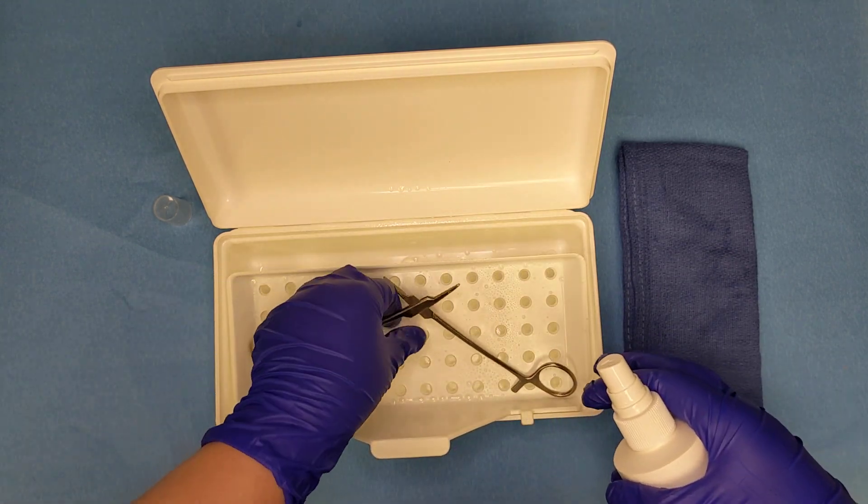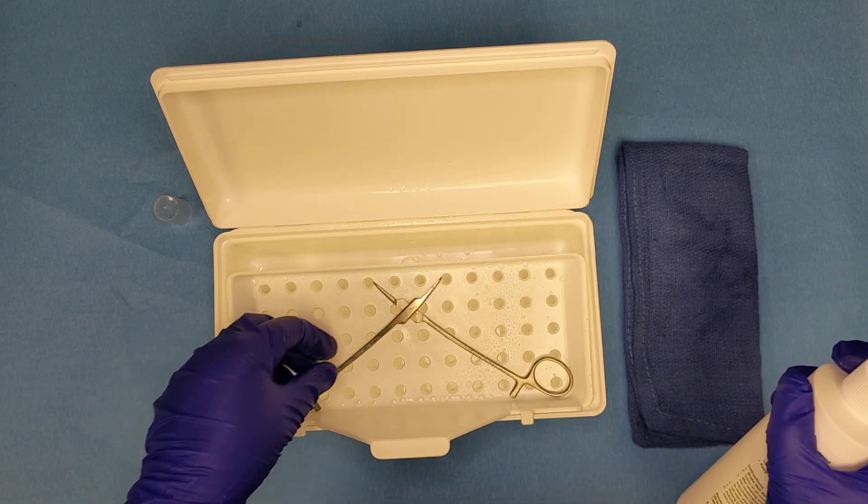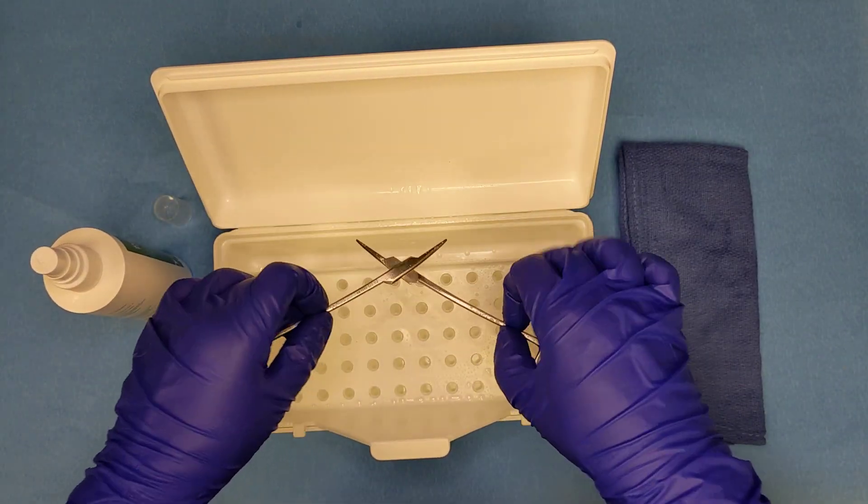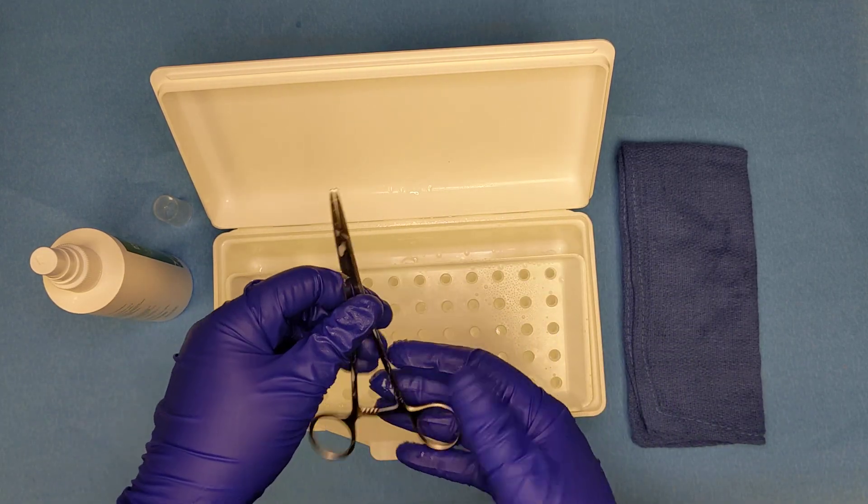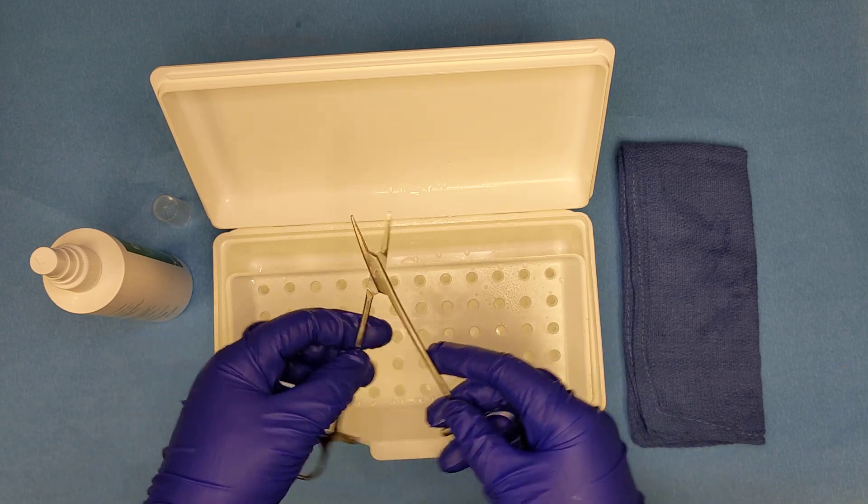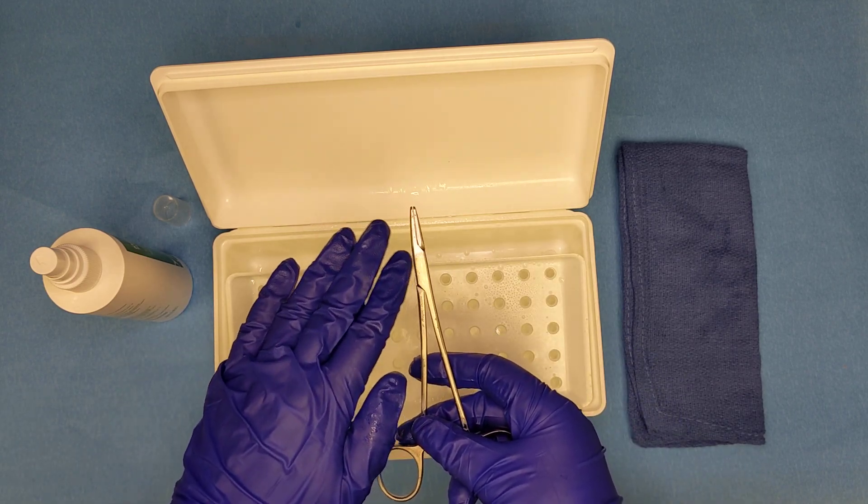Once we are done, we're going to move the instrument to make sure that the lubricant gets in between the moving parts and make sure that there isn't anything that feels like friction. If so, we would reapply lubricant.